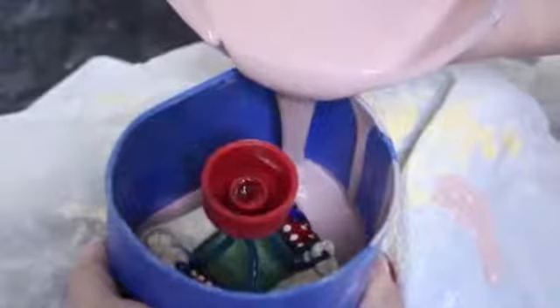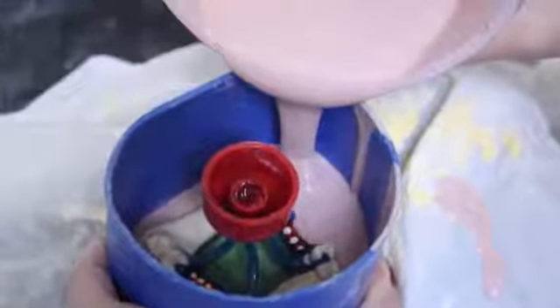After mixing is completed, the pattern is now ready for investment. The ring is placed on a vibrating table and the investment material is allowed to flow slowly to cover the wax pattern and the sprue channels. Note that excessive vibration should be avoided because it can dislodge small patterns from the sprue former resulting in miscast.